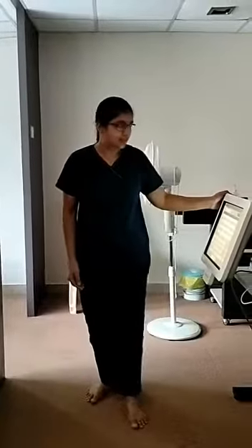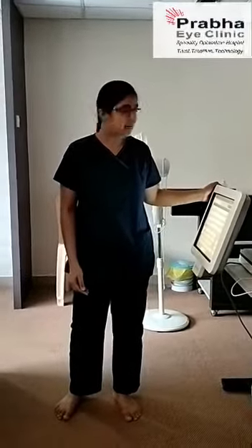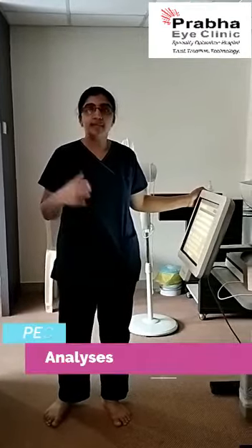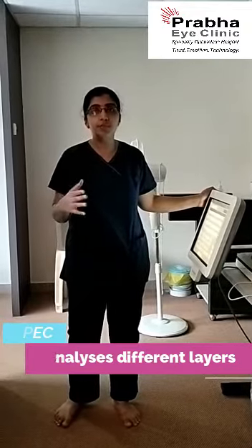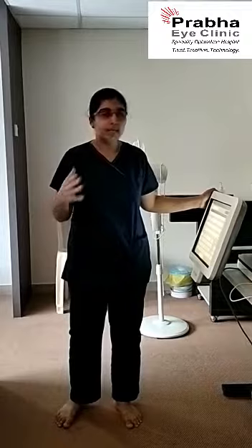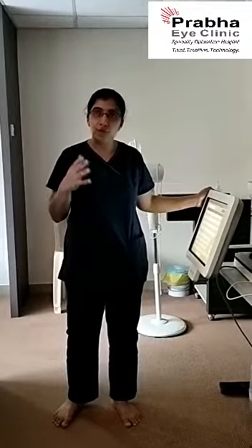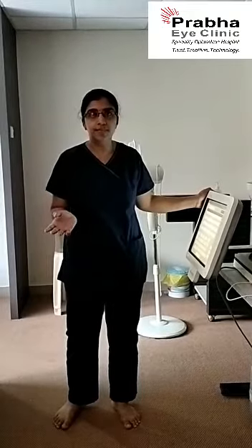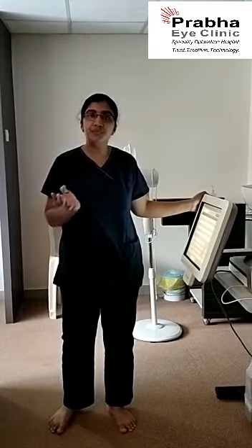Hello everyone, today we will introduce you to this simple equipment called the tear film analyzer. This is equipment which analyzes the different layers present in our normal tear film. This will help us diagnose what exactly is the problem in the so-called dry eye, as dry eye can have several causes.